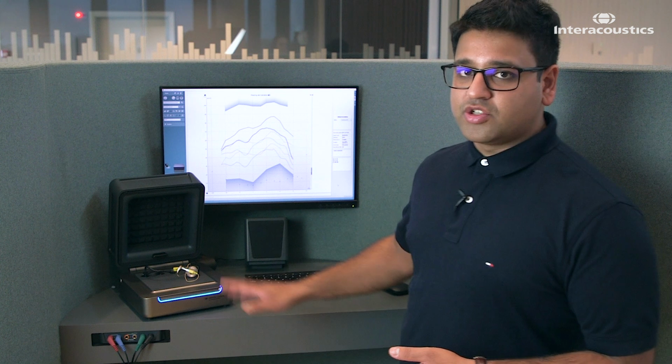At this station, I want to show you the hearing aid transition feature, and this is something that we discovered or created whilst doing the development phase of the Affinity Compact. It supports the scenario where you have a patient that's attending your clinic for the first time, but they already have hearing aids and yet you've never seen them before.